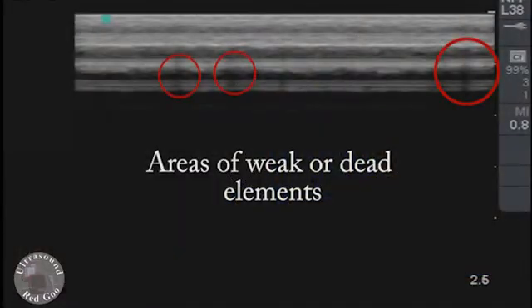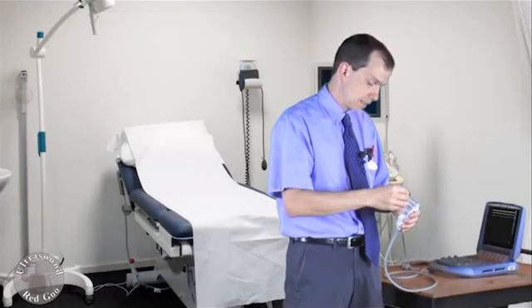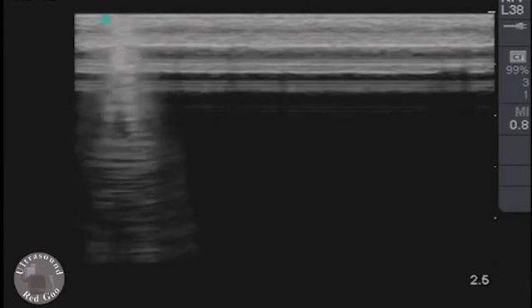Now as I can see already I have a little bit of shadowing going on. What I'm going to do is take the flat end of this key and swipe it across gently. We don't want to scratch that lens.